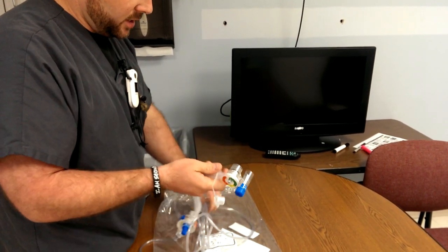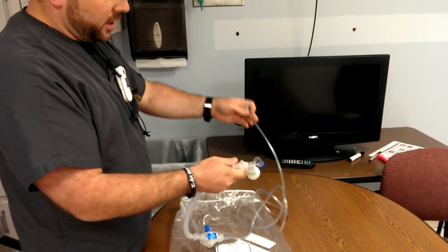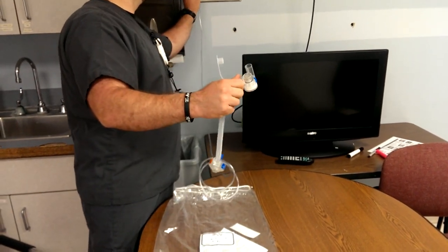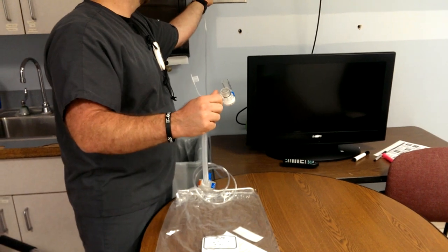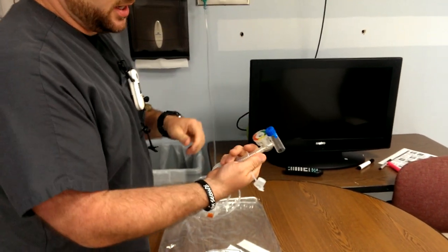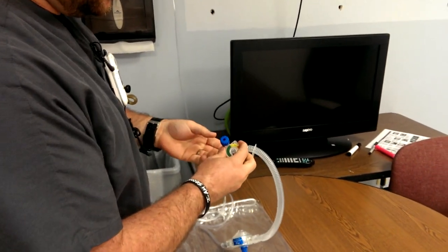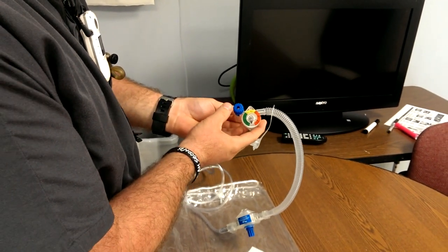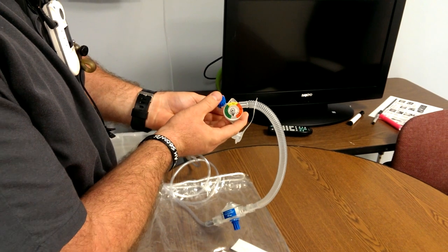So let's plug this in. As a general rule, run it at 8 to 10 liters on the flow meter. If you increase the flow, it's mainly going to change your peak flow — it's going to go from baseline to your PIP faster.